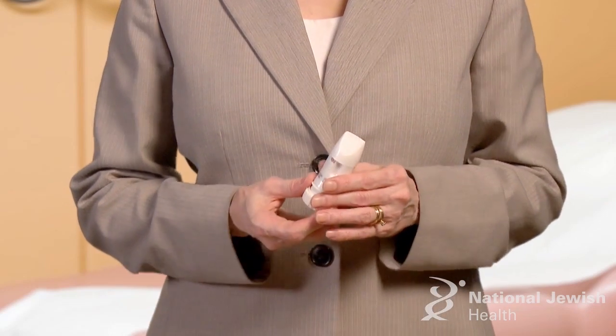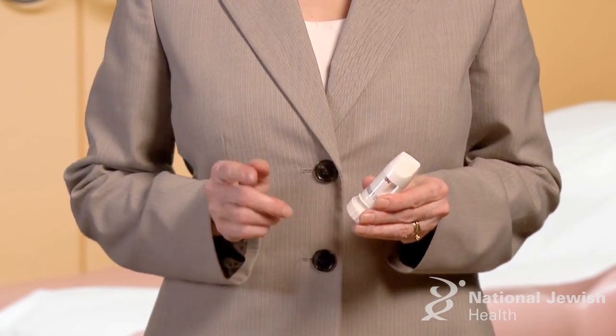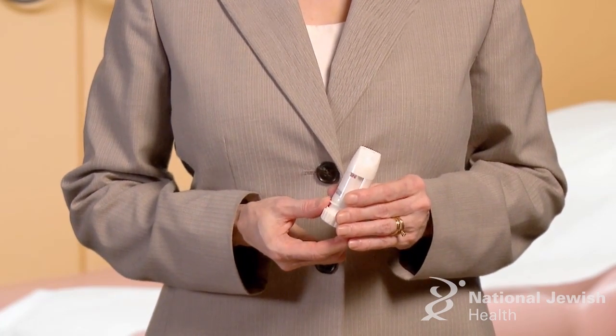The Flexhaler has a dose counter window below the mouthpiece. It will let you know approximately how many doses are left. When the device is full, you will either see the number 120 or 60 at the center of the window, depending on your prescription.